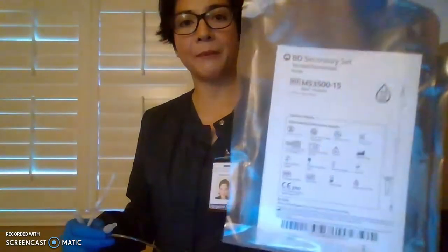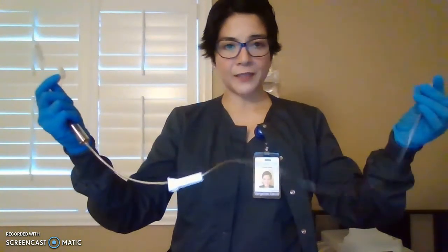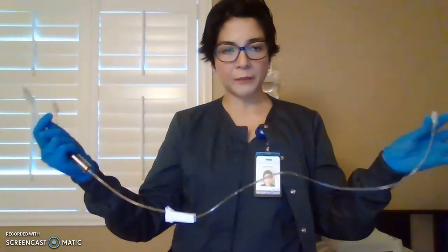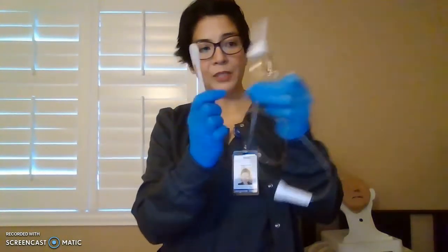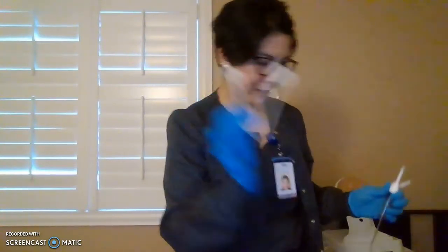Okay. And so now let's go to our equipment. Make sure you have a secondary equipment. This is for our piggyback. All right. This will be for the antibiotic. Why make sure it's a secondary set? Because it's different. It is much shorter than our primary line. There's no Y-site. You're not injecting any other medication through this. And although the ends are the same, spike end and the adapter end, you have a hanger for later.